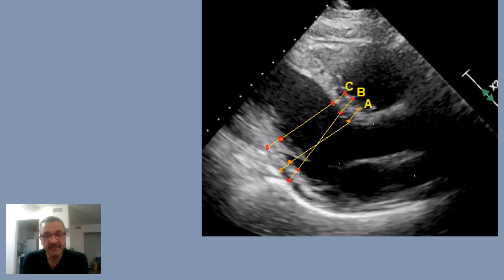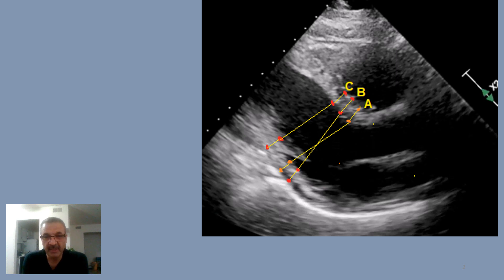Look at this end-diastolic PLAX view picture — three texts, three different measurements. What do you think? Which of them is correct?